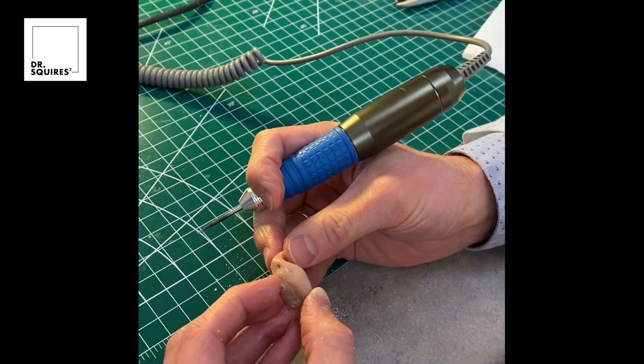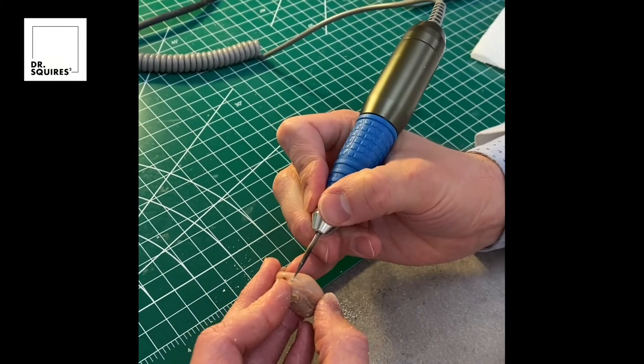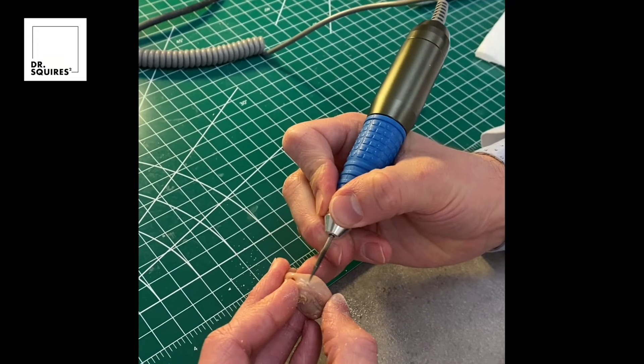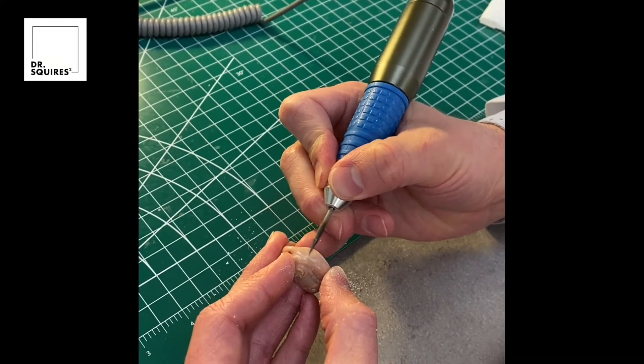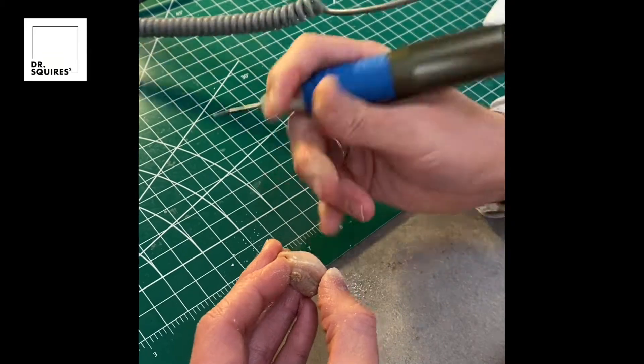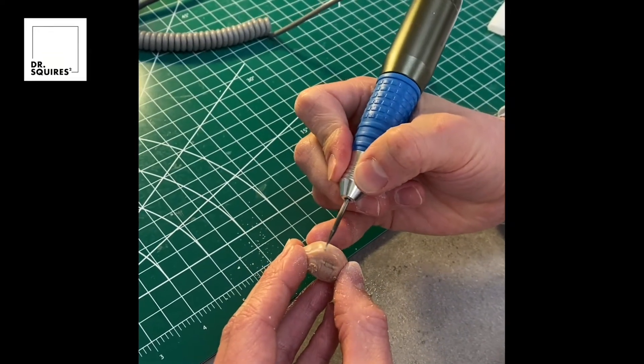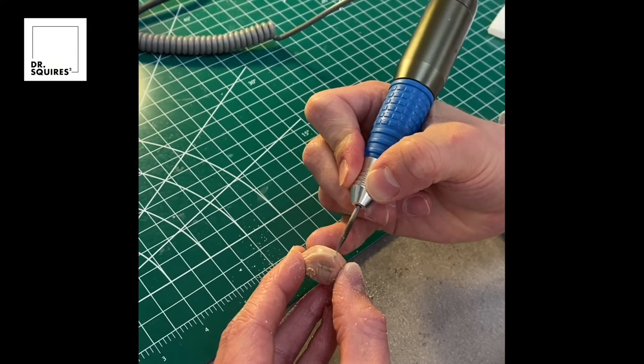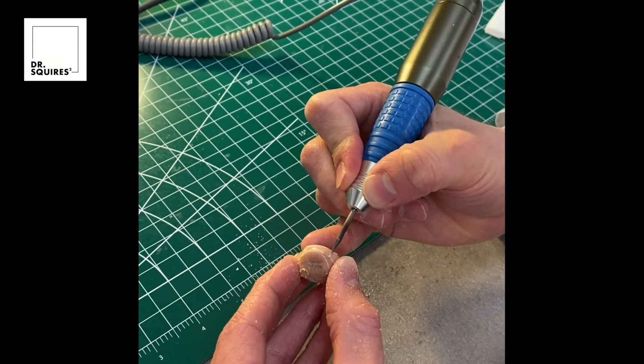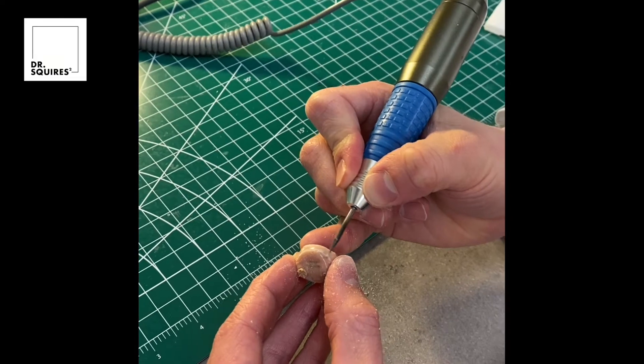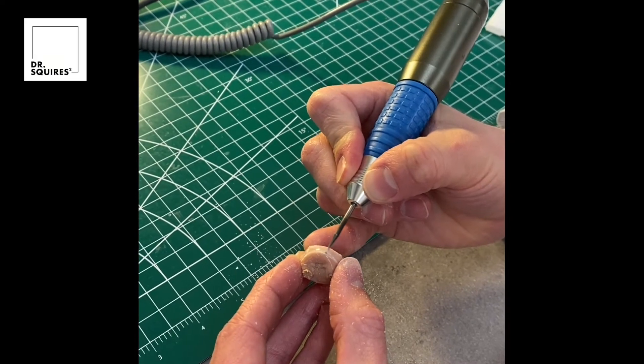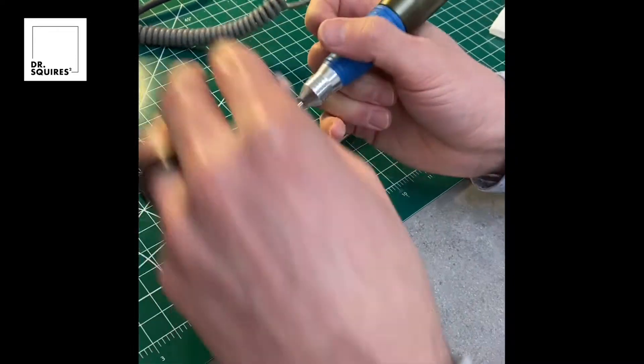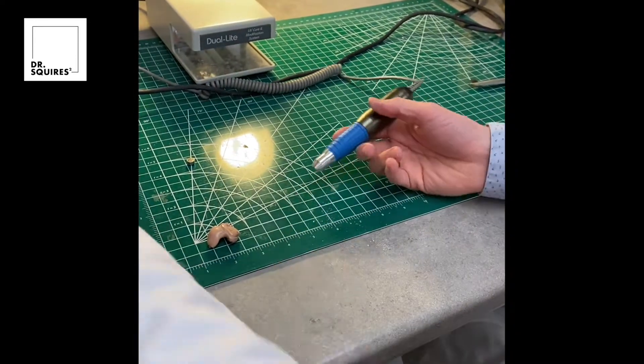You can see here that I'm just feeling around that face plate to see if that crack extends where you can't really see it but where it still might be there. I can just check this with my fingernail to make sure. We don't want to add anything that we don't need to, but we also don't want to miss any parts of that crack because that gives an opportunity for it to open back up at a later time.